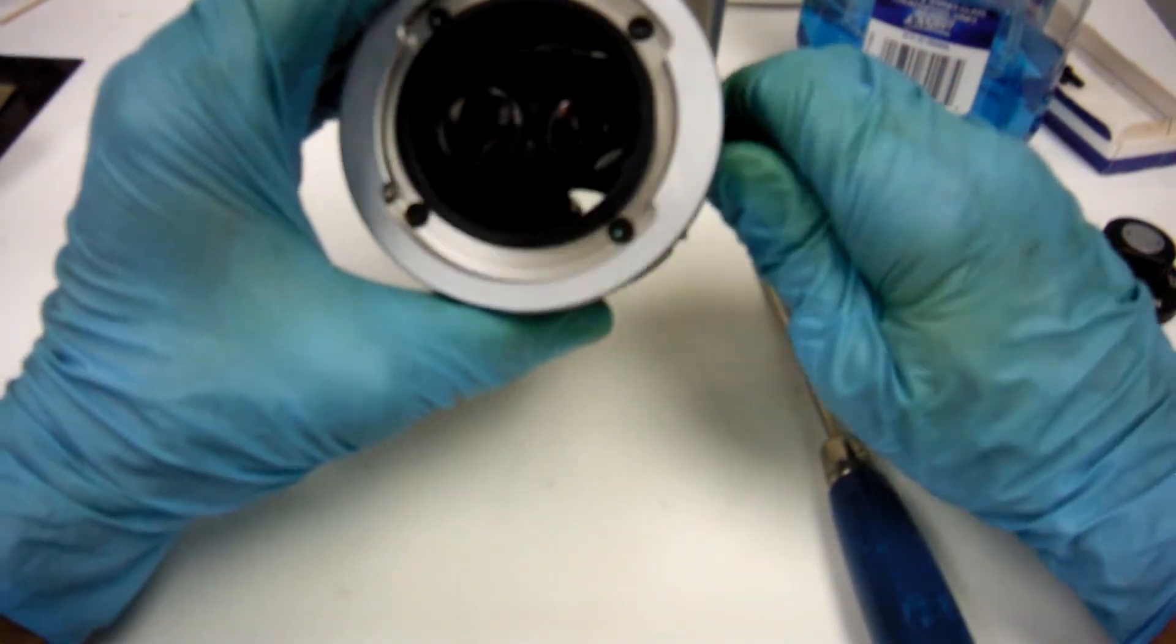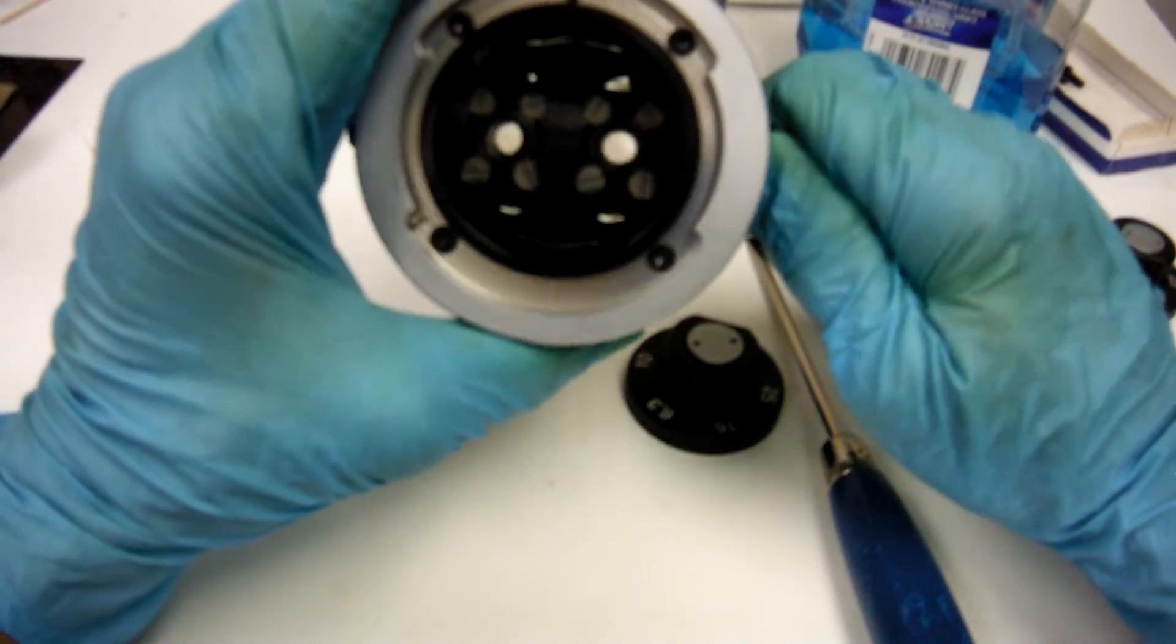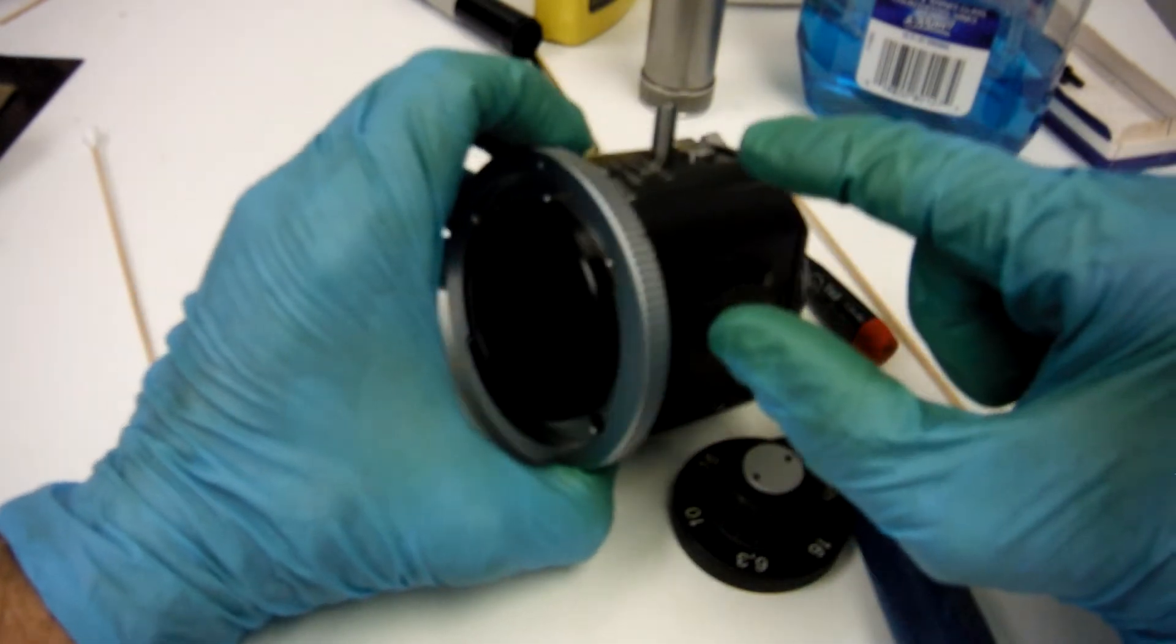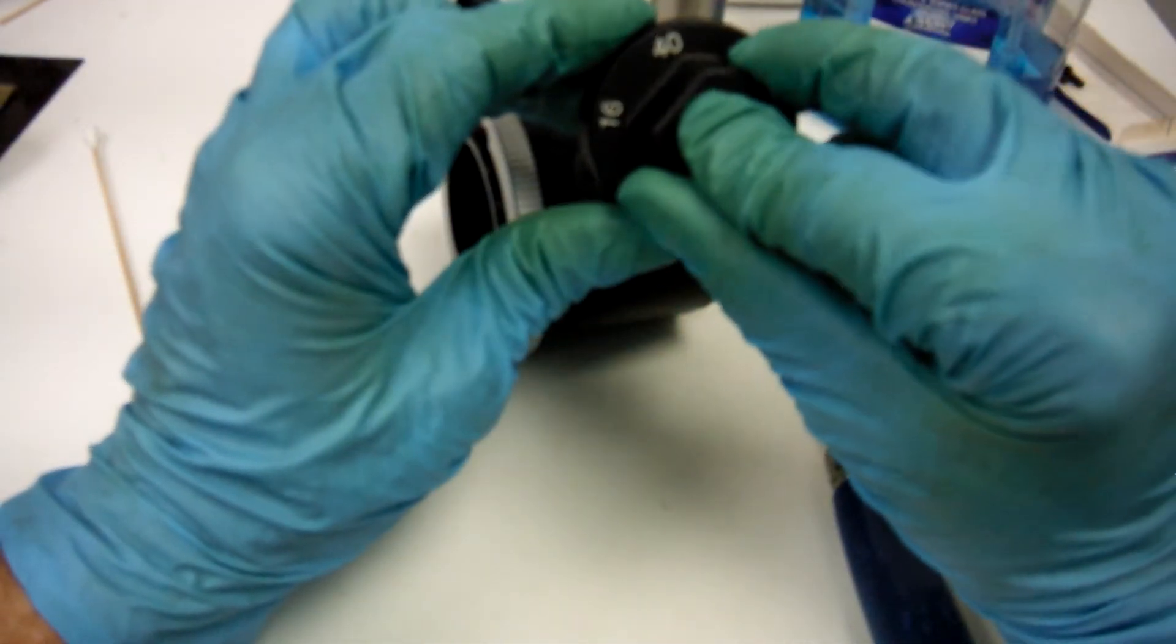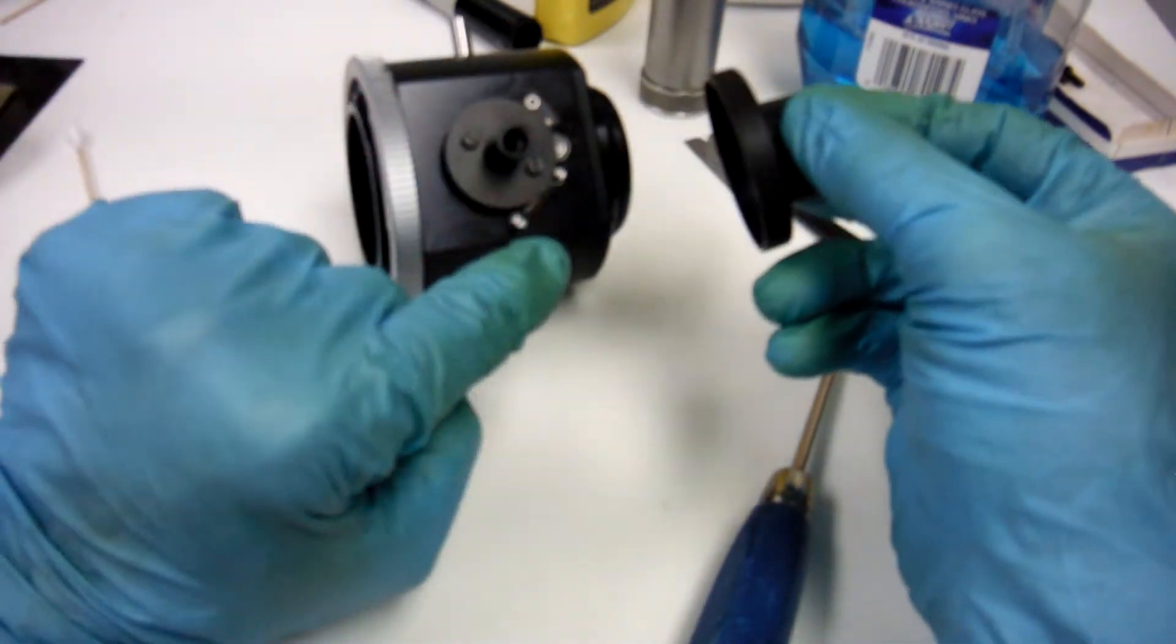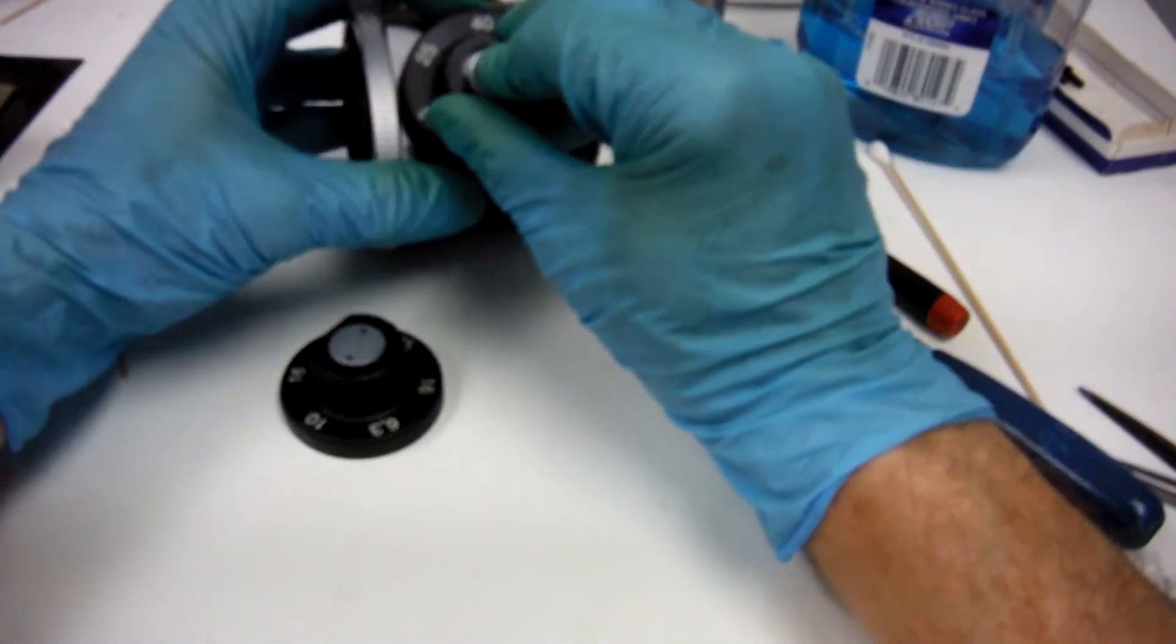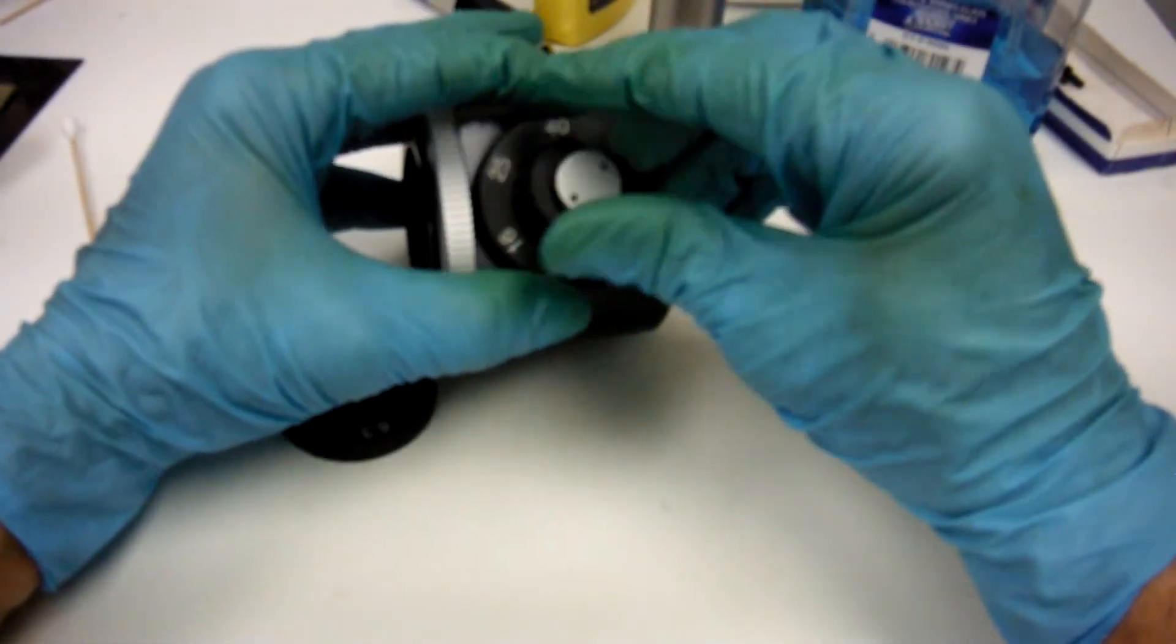Something that might be helpful is if you didn't know which one was which, just turn the mag until the smallest lens. That's going to be the 40. 40 is going to be right up top. Smallest lens, 40 on top. This is my left, but if I didn't know that, I would see where my screw heads are. Now that doesn't work. Try the other one. 40.